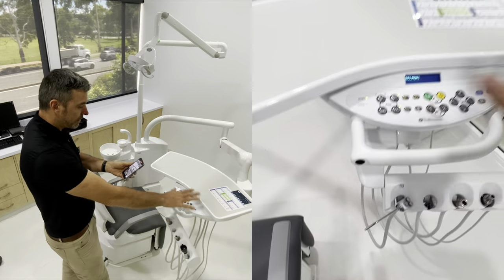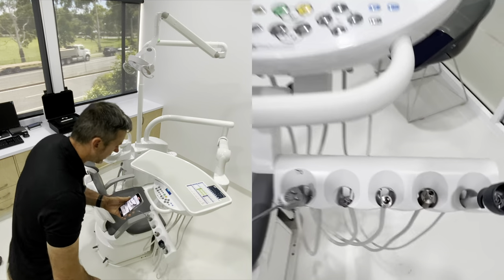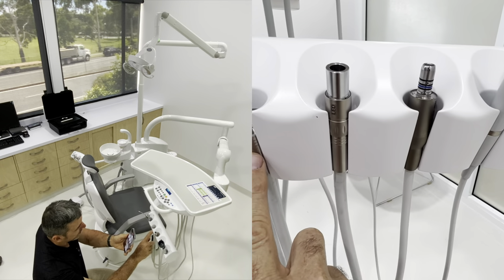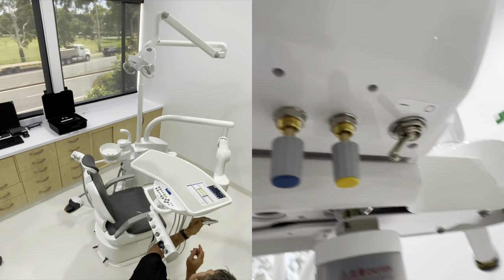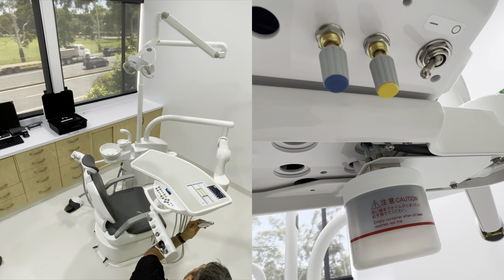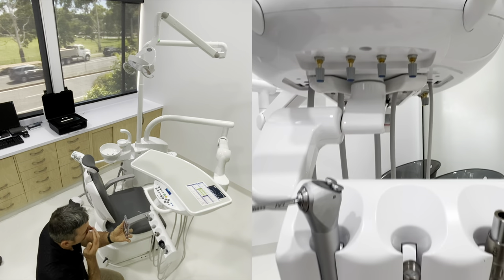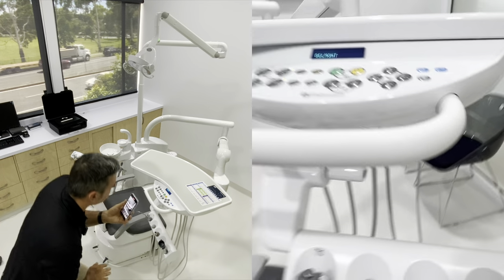So we're going to the doctor's tray. This is our doctor's delivery with our hangers and our Triplex under here. Now we've got one, two, three, four water pots under here. That lines up with one, two, three, four here. The Triplex syringe has some pots over here - it's got a blue and a yellow. The yellow is for the air and the blue is for the water. All of these blue for the full blue here, blue and yellow at the back for the Triplex syringe.